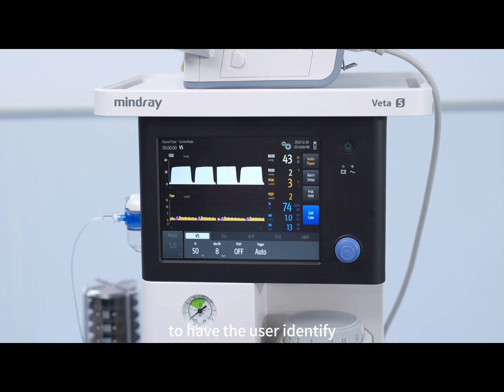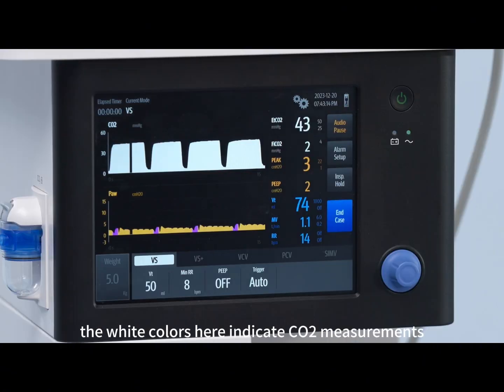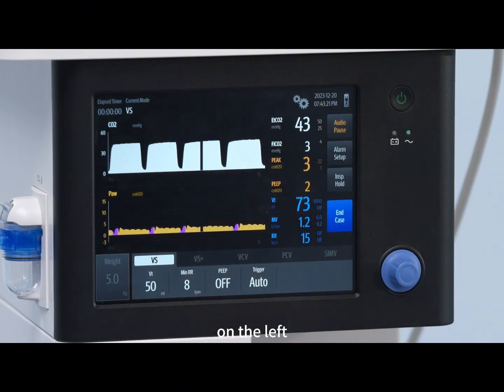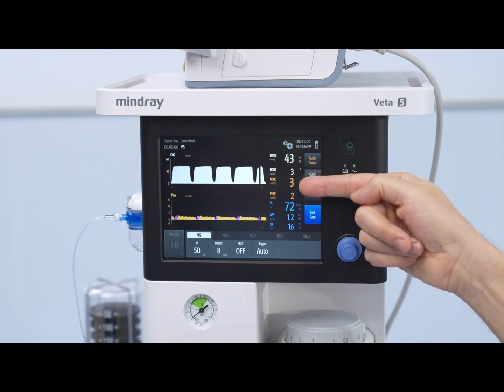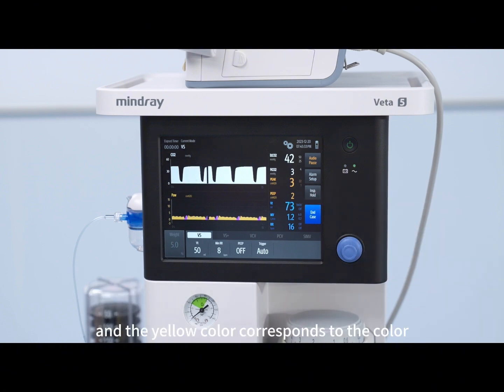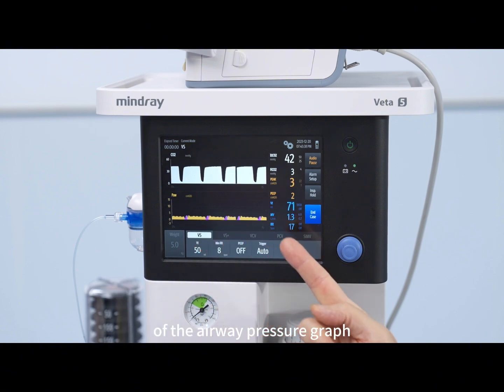the soda lime. To help the user identify which numbers and curves belong together, the colors of the numbers are matching with the corresponding graphs. The white colors here indicate CO2 measurements, and they are corresponding with the color of the Capnograph curve on the left. And the yellow numbers here indicate the peak inspiratory pressure and the positive end expiratory pressure, the PEEP. And the yellow color corresponds to the color of the airway pressure graph.